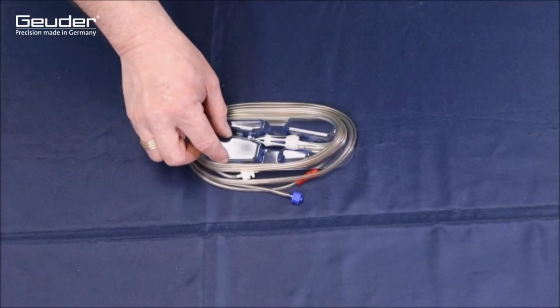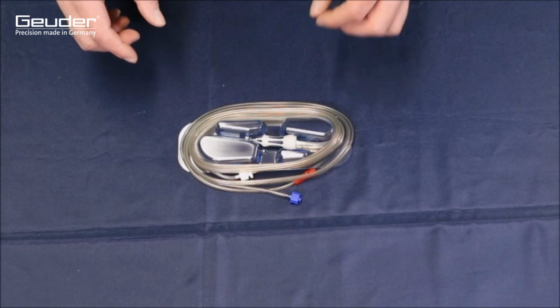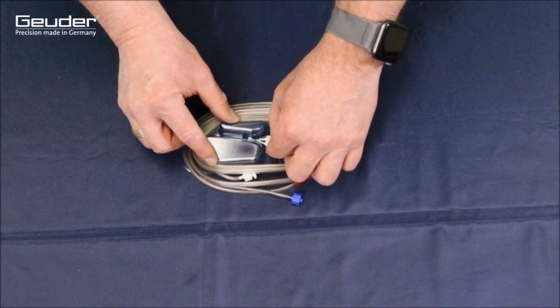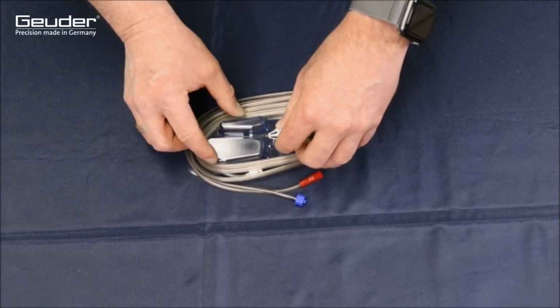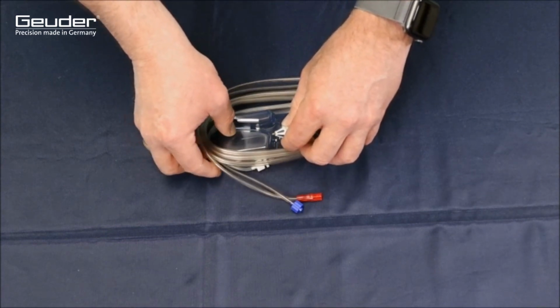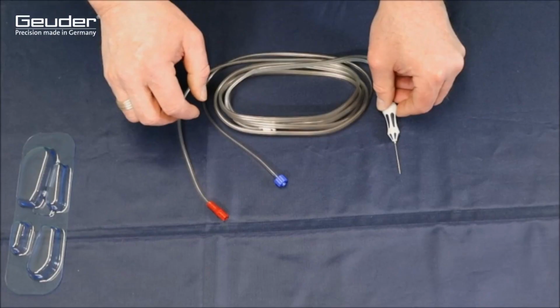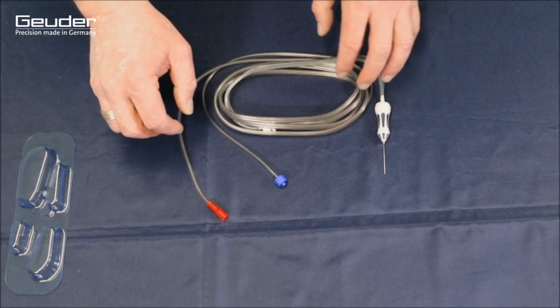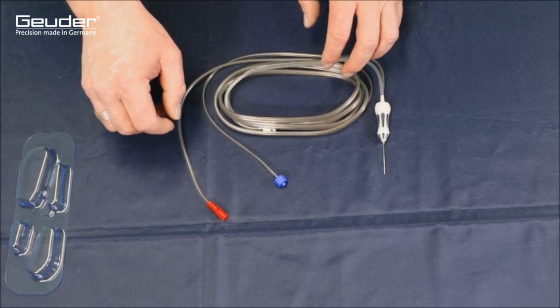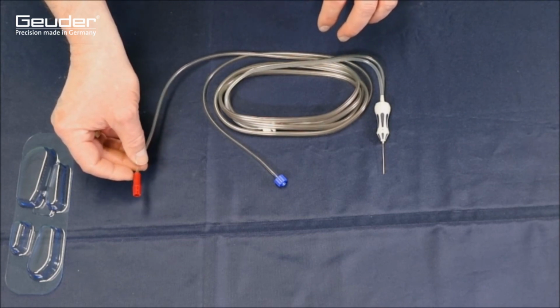The third and last trocar port is used to accommodate the respective working instrument, in the first step of an intervention in the rear section, the vitrector. The vitrector has been removed from the sterile outer packaging and should now be carefully removed parallel to the blister so as not to endanger the sensitive cutting tube. The tubing system of the vitrector has two connections. The color red stands for the aspiration and the color blue for the compressed air.